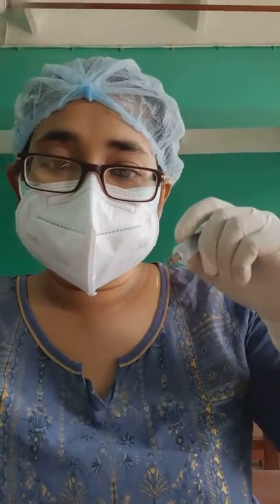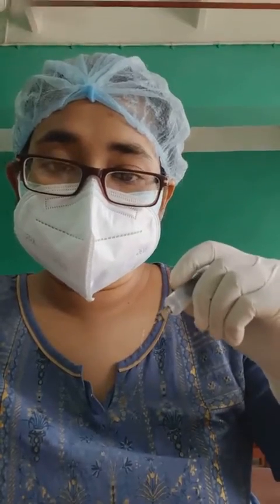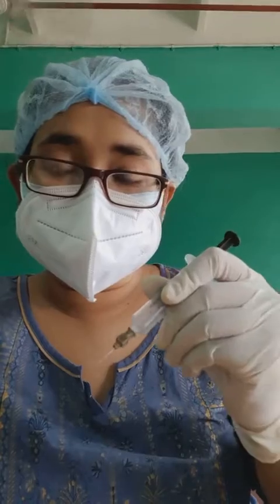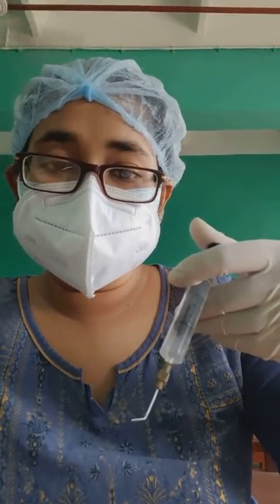Normal saline is put in the syringe. We insert the AC cannula through the punctum into the canaliculi and inject the normal saline — as if instilling artificial water instead of tear substance — to see whether there is any blockage or not. From this syringing, there are many possible outcomes.